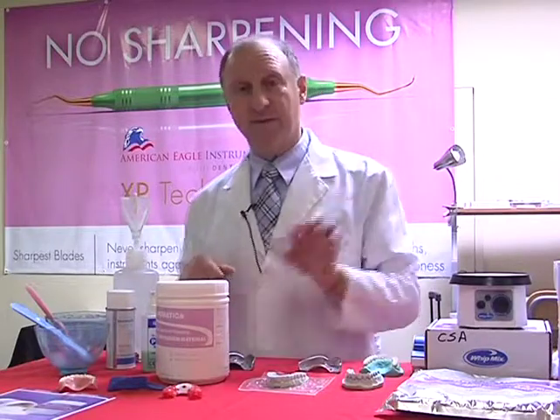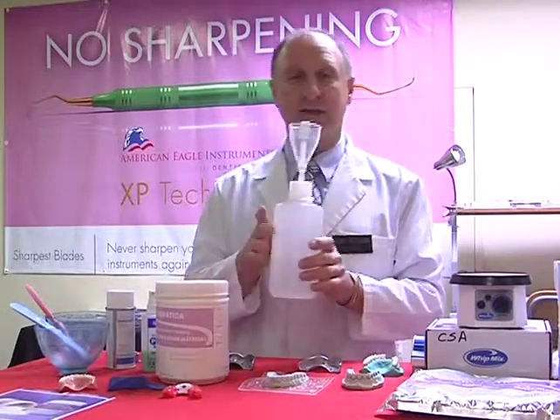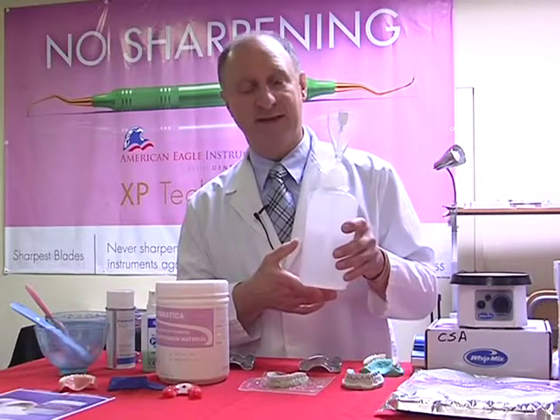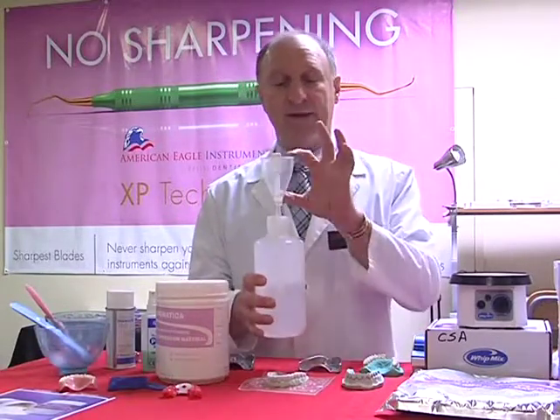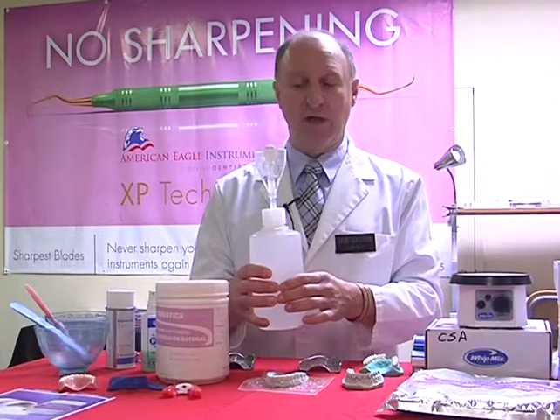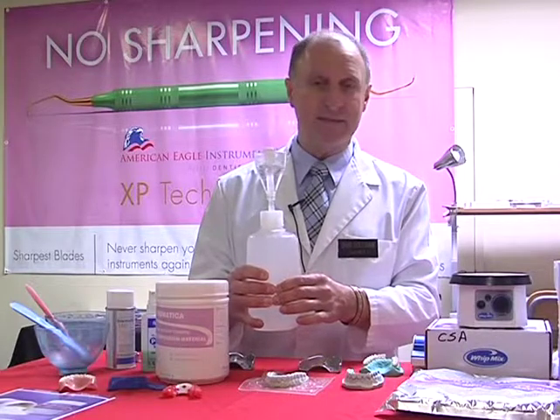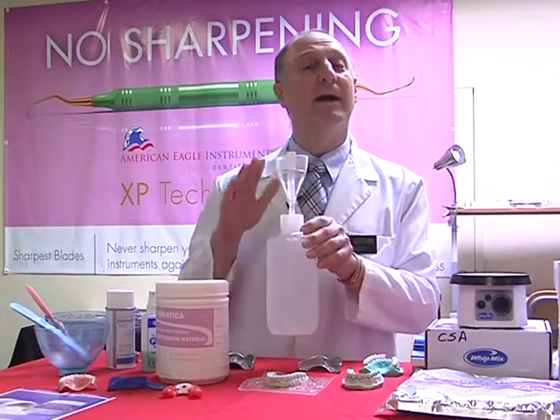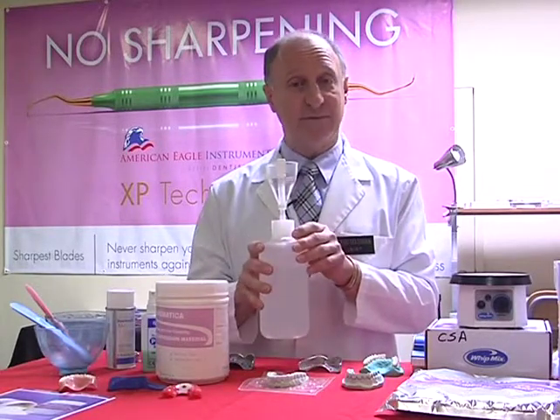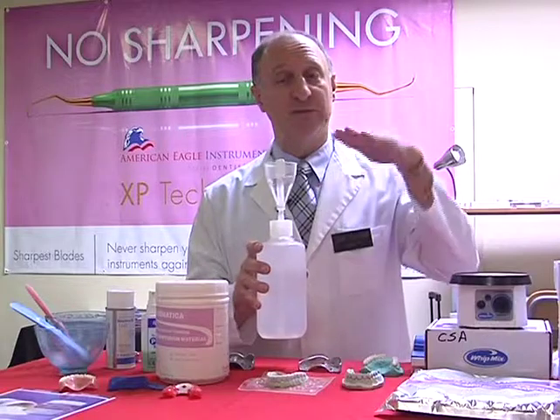So instead of using the preset water measures that come with the material, I've got one of these little gadgets called the H2O dispenser, which comes from the Maytech manufacturing company in California. Great little idea. There is a holding area for the water, and as I squeeze this with a light pressure, the water is pushed through a straw in the center. As the water comes out of the straw, it comes to this little white cap. I then let go, and it sucks back to the perfect amount of 2 scoops, which is preset. If I want to change it to 3 scoops, I would turn it this way, 1 scoop back the other way, so I can always vary the amount from 1 to 3 scoops.